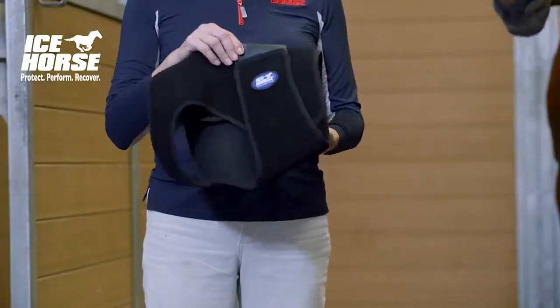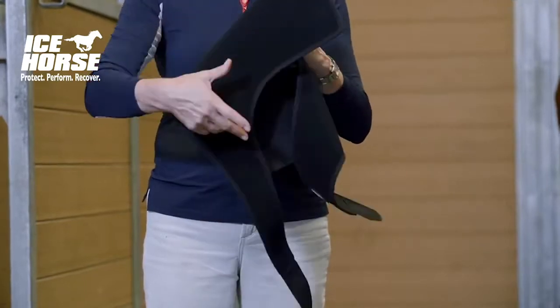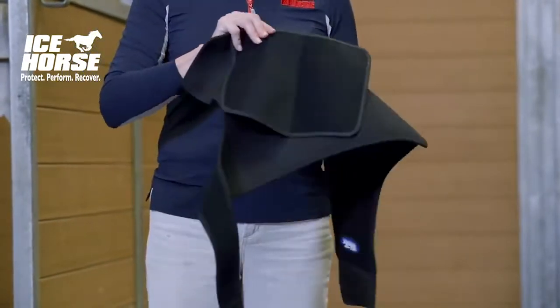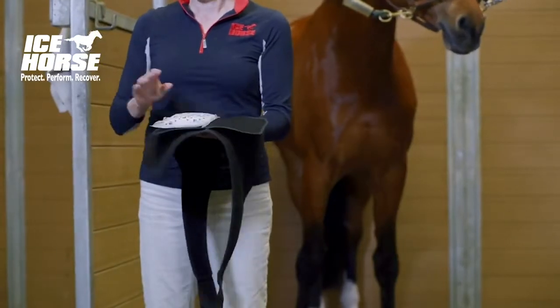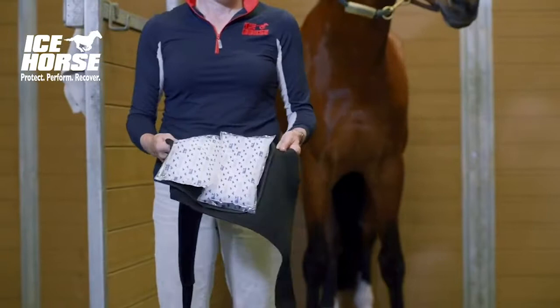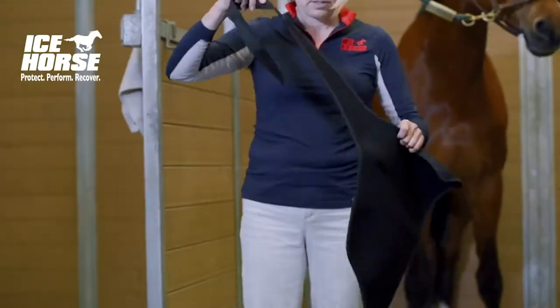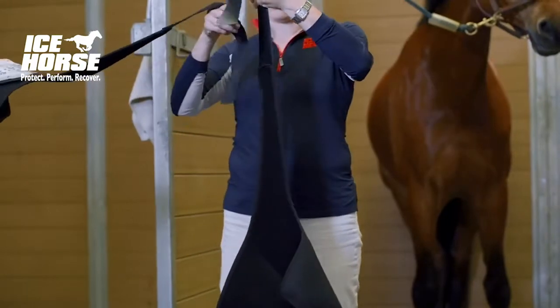When you open up your wrap you'll see that there's a right and a left side. Place your ice on the landing pads and then fasten the two sides of the suspender strap together.